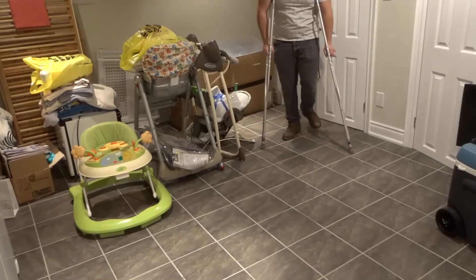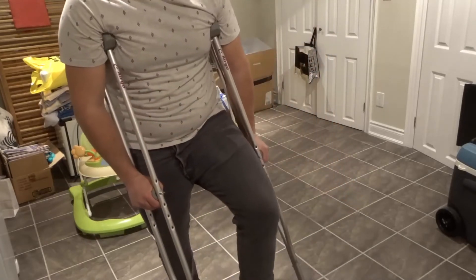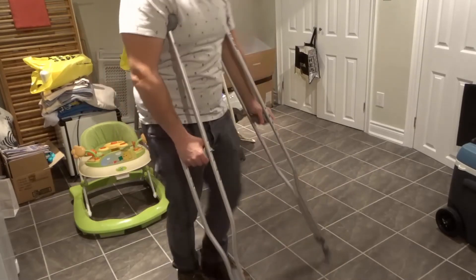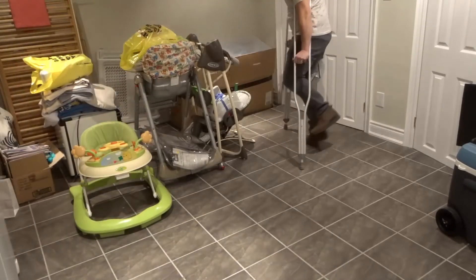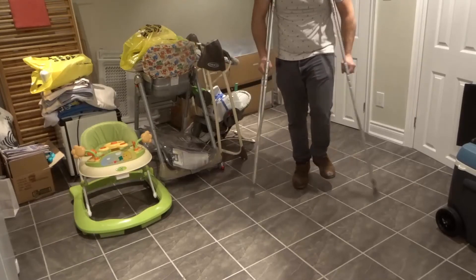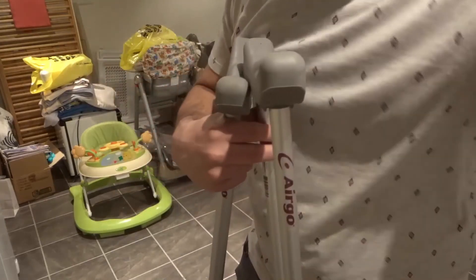If you need to turn, you turn slowly, not quickly. You always want to keep your injured foot in front of you. Some people keep it behind them, but that usually puts strain on the hamstring, so it's easier to keep it in front. Avoid having too much momentum — going too fast is dangerous and you're asking for another injury. Crutches forward, foot forward, take your time. You never want to be in a rush, and you definitely don't want to re-injure or injure your other leg.